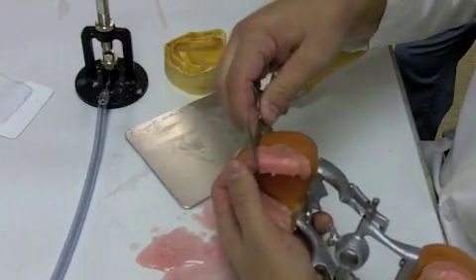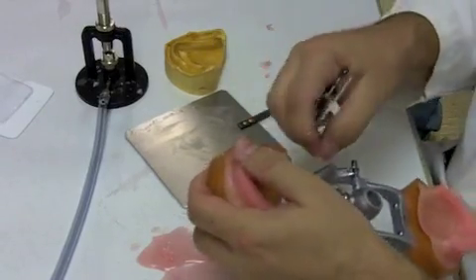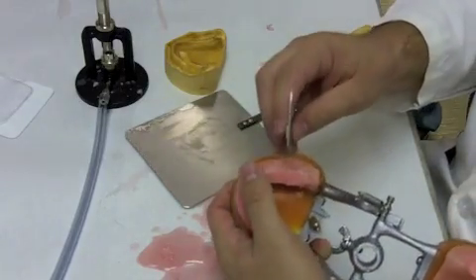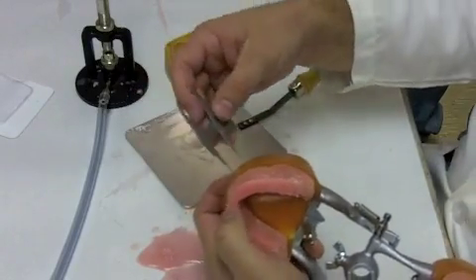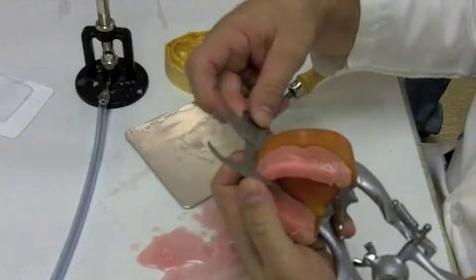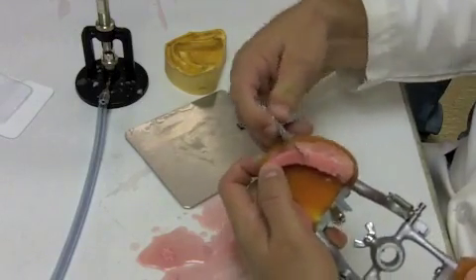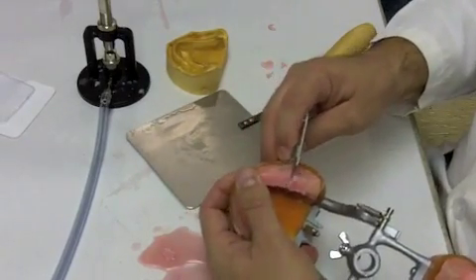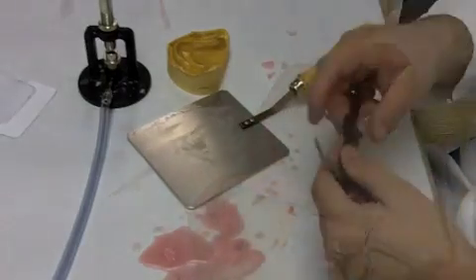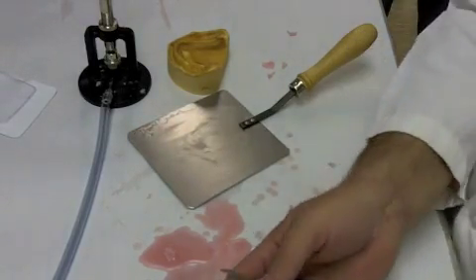Okay, so once we've double checked everything, we make sure that our rim is 28 millimeters all the way around. Then we want to go back and reevaluate our rims and make sure that we're comfortable with our 60 millimeters. Okay, so we take our Boley gauge and we set it at 60, and we check to make sure that it will fit over the typodont.